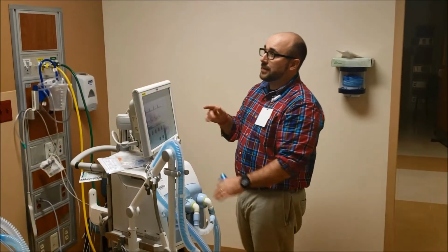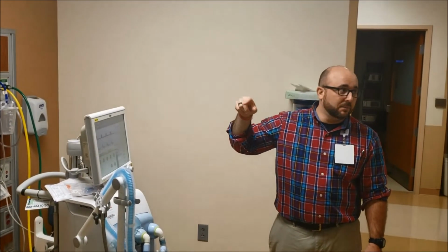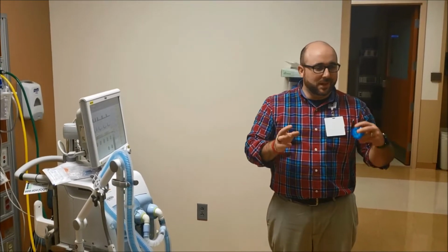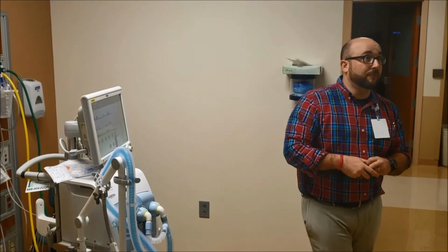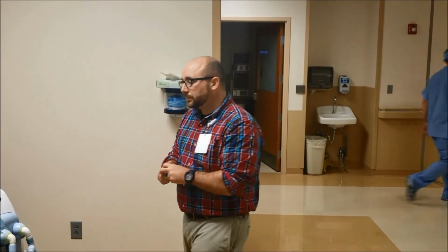One cool thing about this device is we could plug it into that black box up there, and it could import into Cerner, because that's what we do in ICU. Since you guys don't have them on real long, it's kind of a lot of different clicks and transfers and things like that, so we usually don't do it. But if you have someone out for a long time, or for some reason we had a patient down here for a long period of time, we could run it through that box, and it would import to Cerner, which is kind of cool.